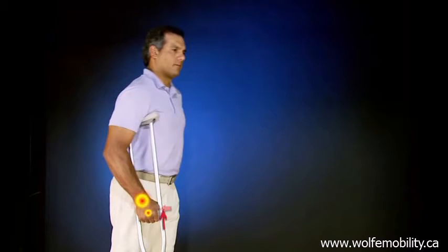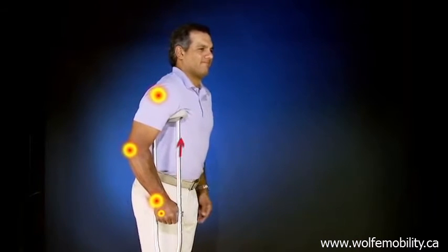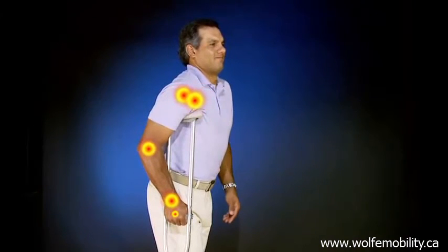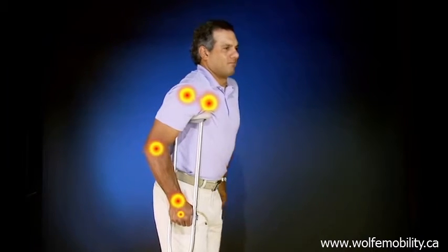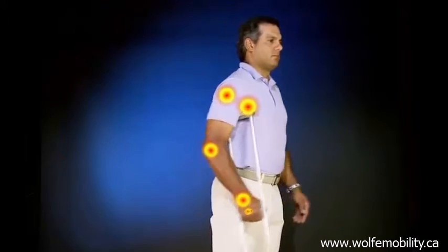Essentially, the problem is due to the transmission of force vectors to anatomical structures that do not have the capacity to withstand shock, vibration, and the large loads that walking on crutches imposes on them, causing the injuries mentioned.